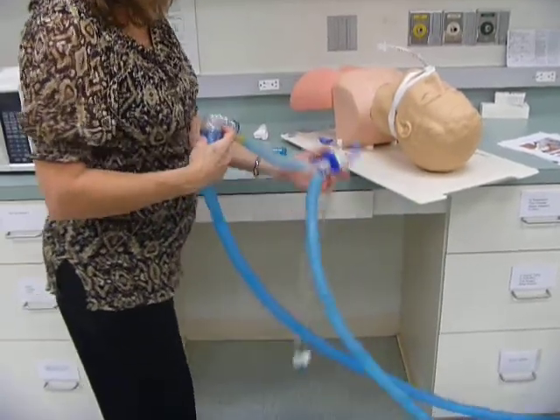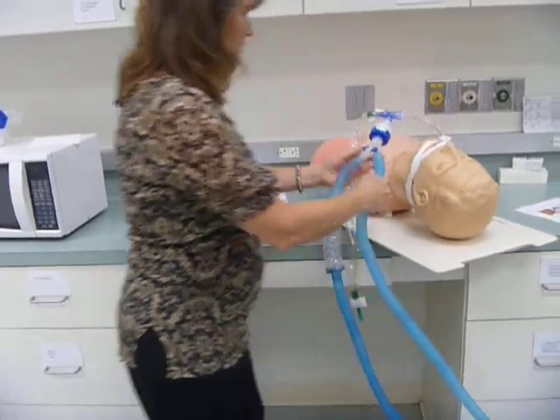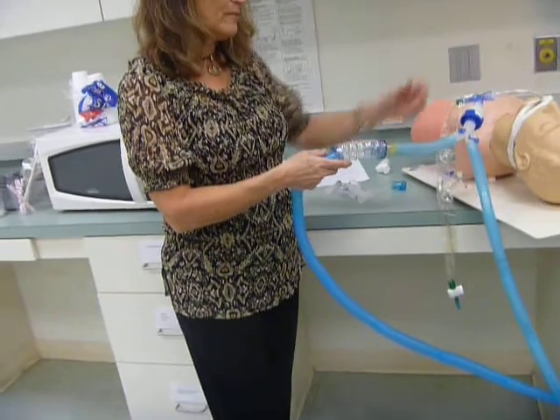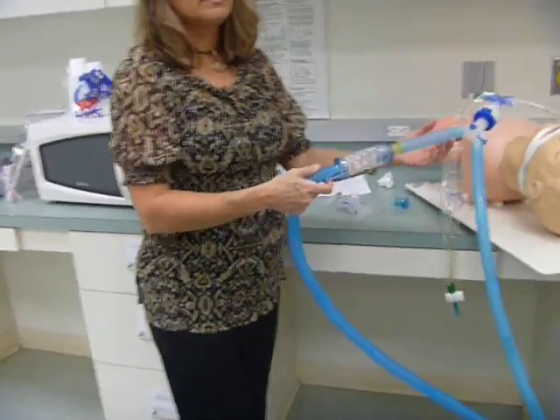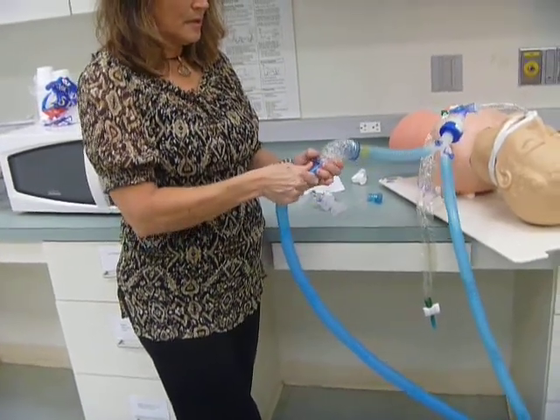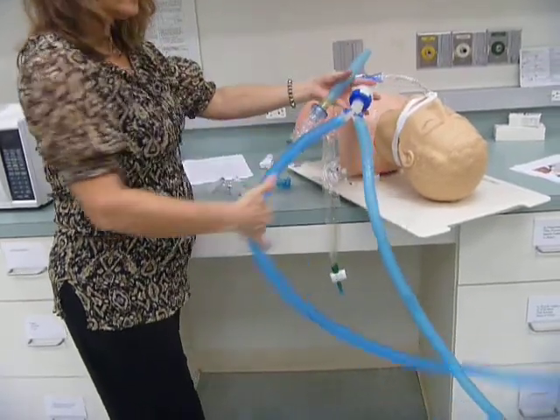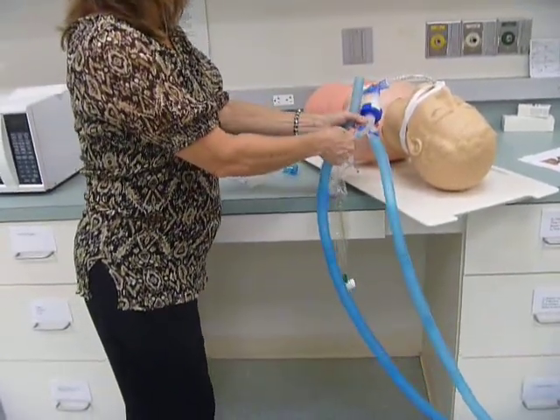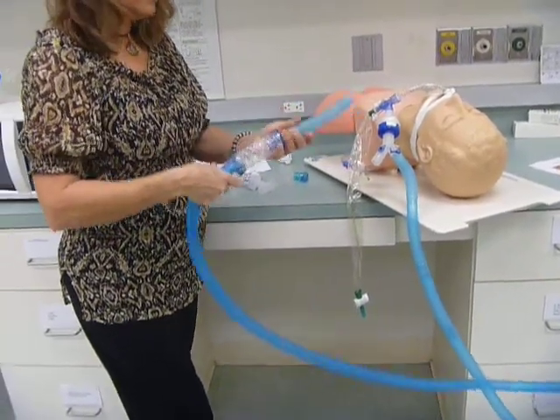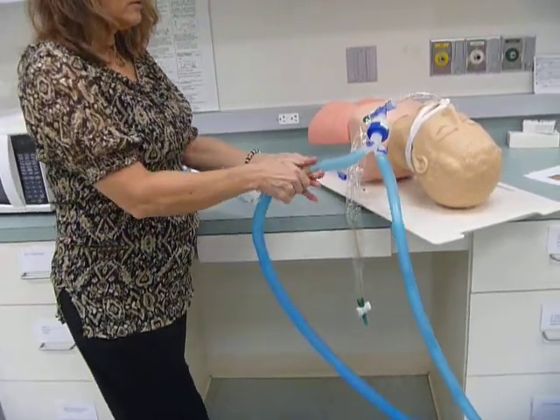Okay, it's not working too well to stay in place. I use some adapters just so I could have the spacer a little bit further away from the endotube. I'll repeat it so you can see it again. So this is the ventilator circuit. We detached it from the Y and then added the spacer. And now to deliver the meds.